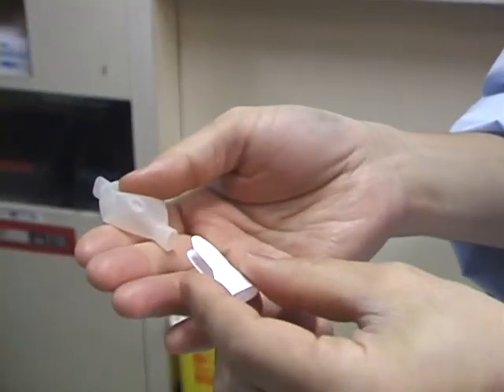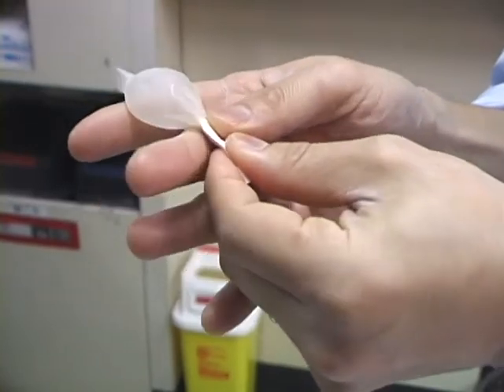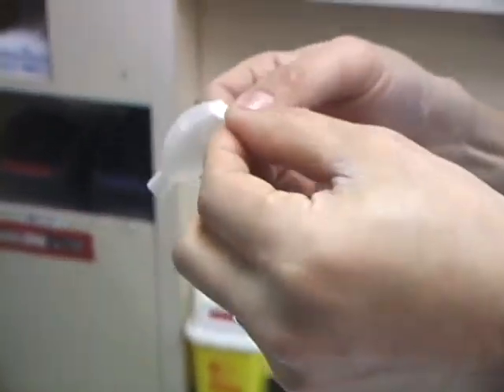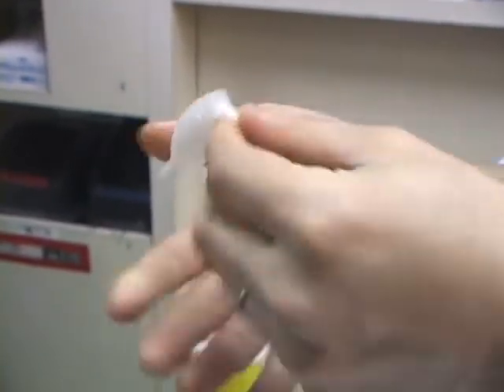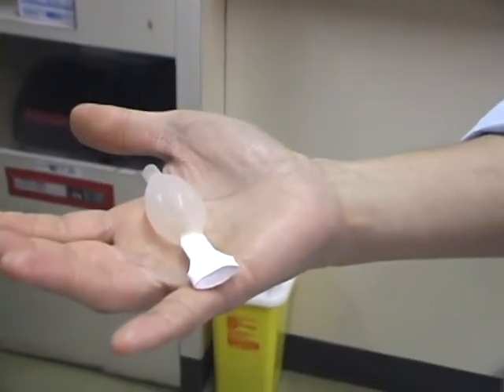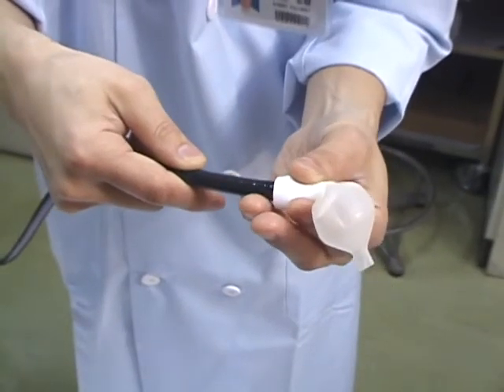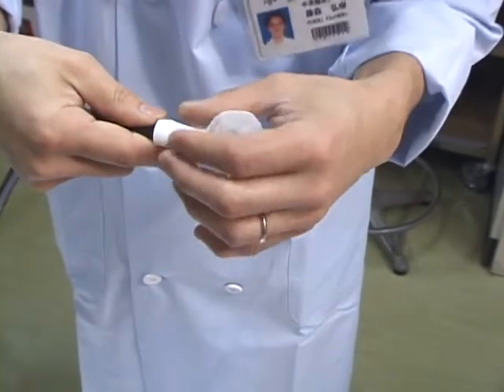The attachment tool is inserted into a balloon. After removing moisture from the end of the scope, the mouth of the tool is widened, the balloon is inserted into the scope, and the tool is removed. Afterward, the balloon is moved to the proper fixation position and secured in place with the specially designated rubber piece.